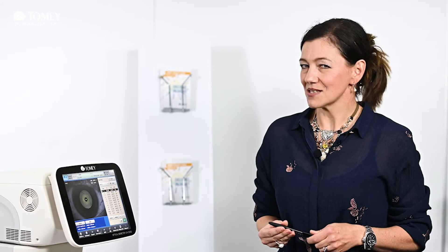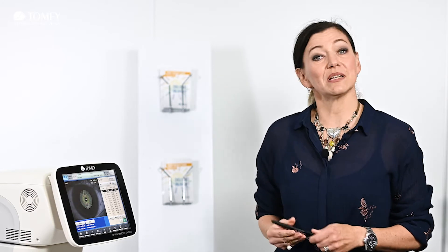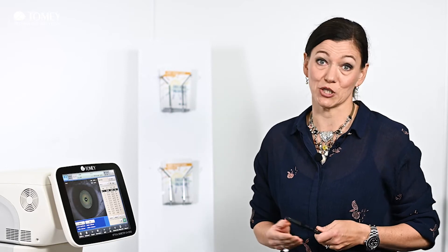As I mentioned in the last video, we take the topography with Placido rings. We are using nine rings in total, with each ring having 256 measurement points. So we carry a lot of information in just one measurement.